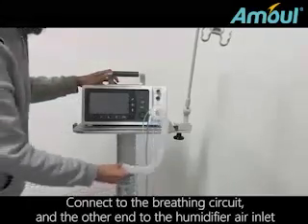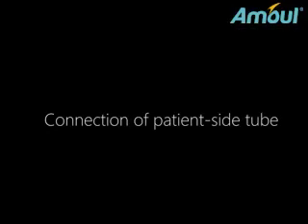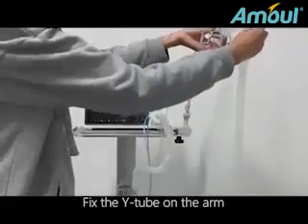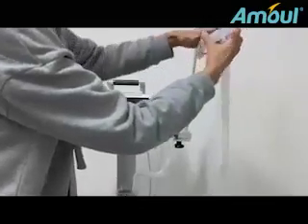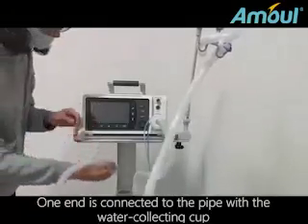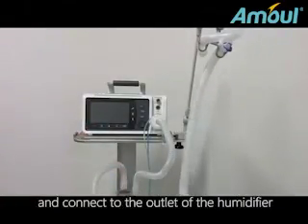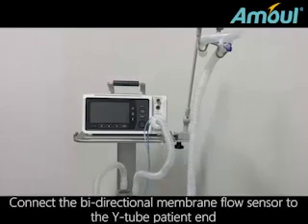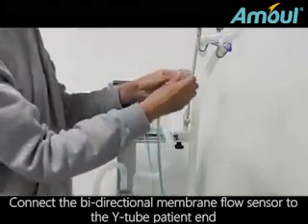Connect to the breathing circuit and the other end to the humidifier air inlet. Connection of patient side tube. Fix the Y tube on the arm. One end is connected to the pipe with the water collecting cup and connected to the outlet of the humidifier. Connect the bidirectional membrane flow sensor to the Y tube patient end.